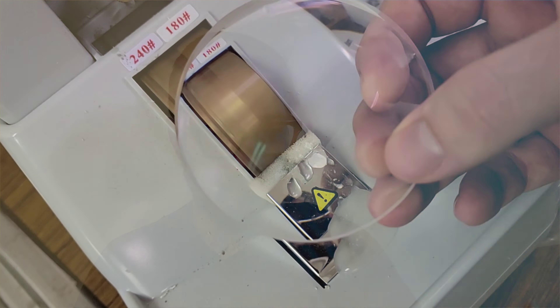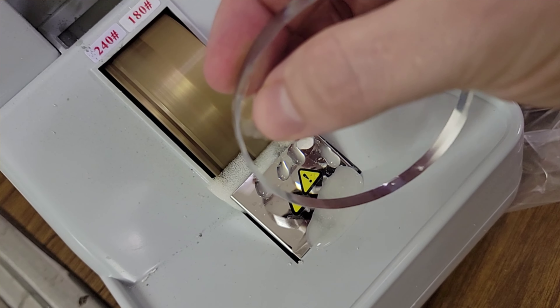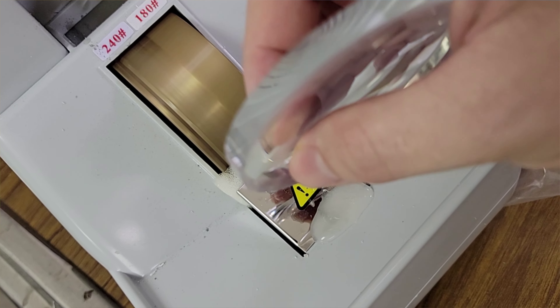We call those myopic rings, and they are not your friend. That's the quick and dirty of the safety bevel — the reason you see that. The reason I mentioned cheaper glasses is because it's more automated. When you're running high volumes at razor-thin margins to make a pair of glasses for 10 or 20 bucks, you don't care — whatever that machine spits out is what you're sending out the door.